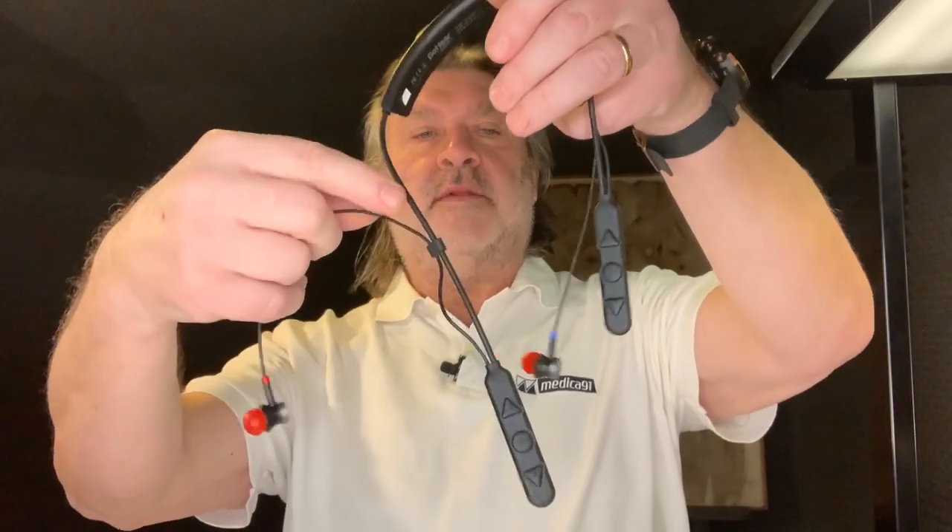Here is the other one. You need to press a little bit and put it on — and it stays on firmly. There is right and left, because this is a stereo stethoscope. The right is red and the left is blue. It fits very well.